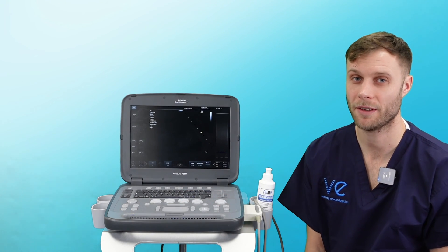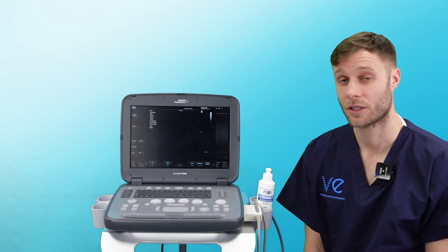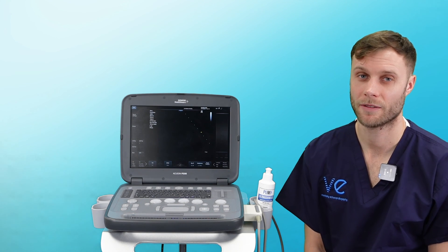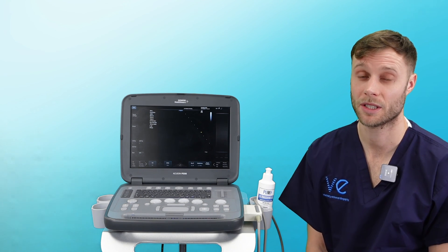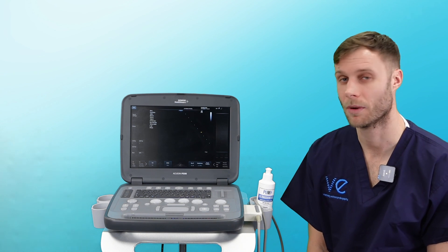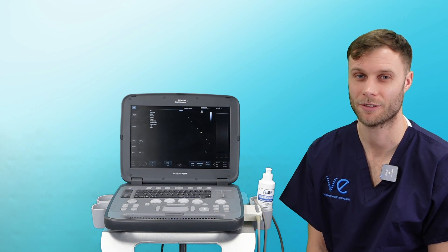That's a basic overview of the P500 and its basic controls. If you want us to cover anything else, just write in the comments and we can do further videos covering more functions for you. Thank you.